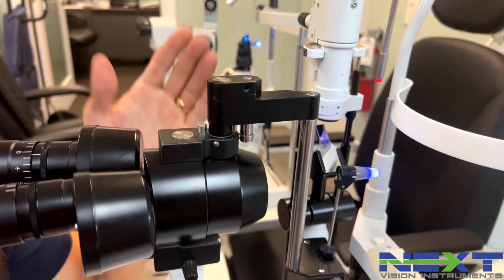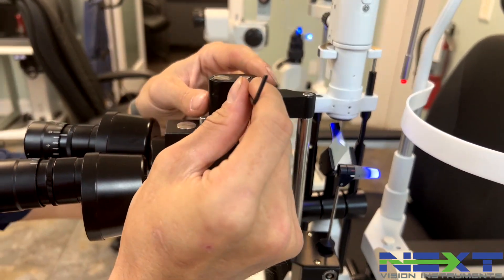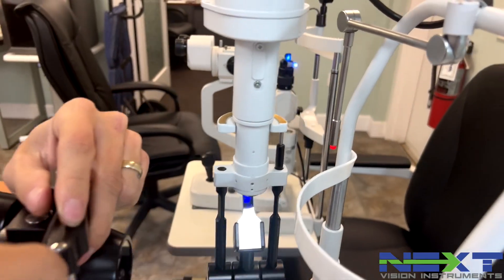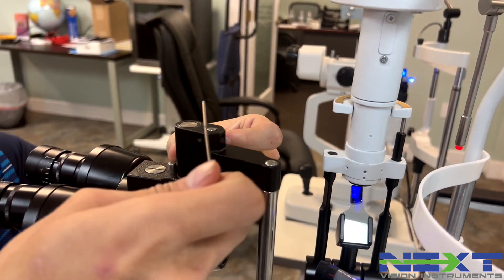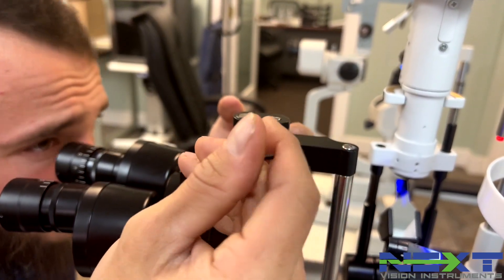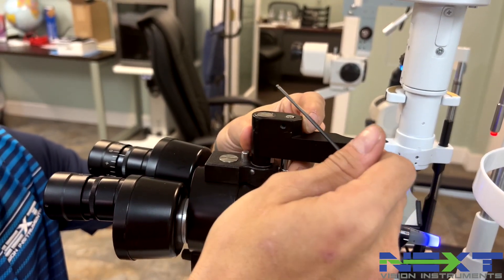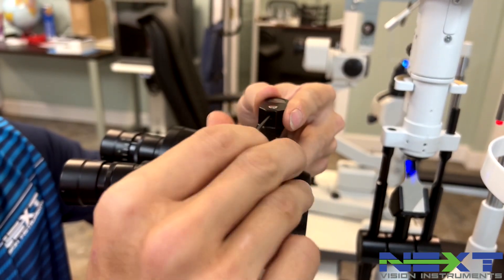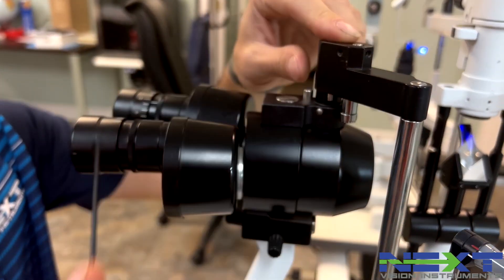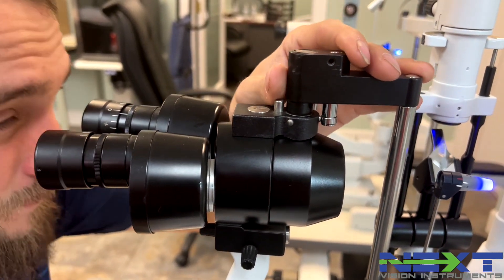Right now the tonometer tip is off — down and to the left — so I need the tonometer tip to come up and to the right. There's one screw on the front and then two on the sides. Now the R900 is just a little bit more difficult because the whole slide will fall out with the bearing when you loosen the front one, and that's basically how you get the tonometer to lock into place as well. So just be aware of that.